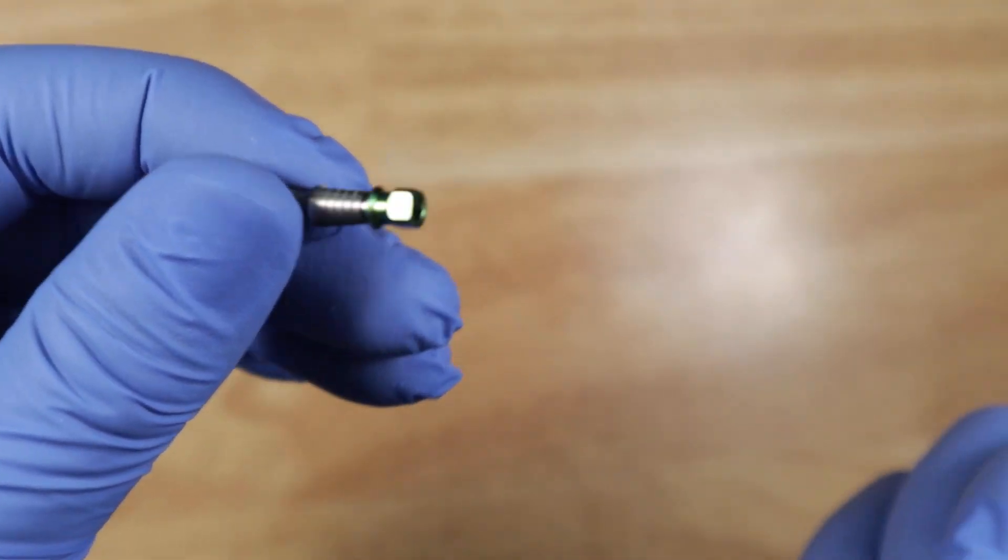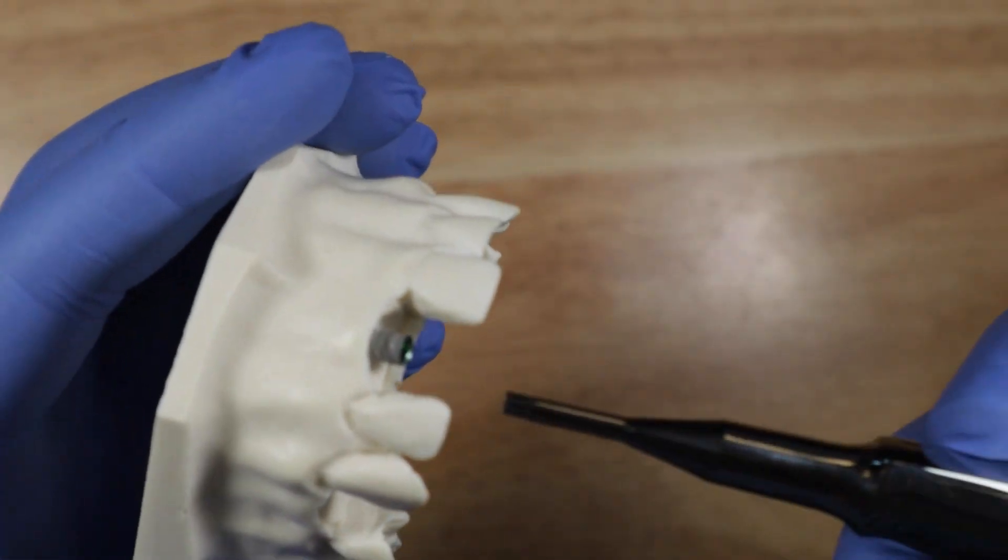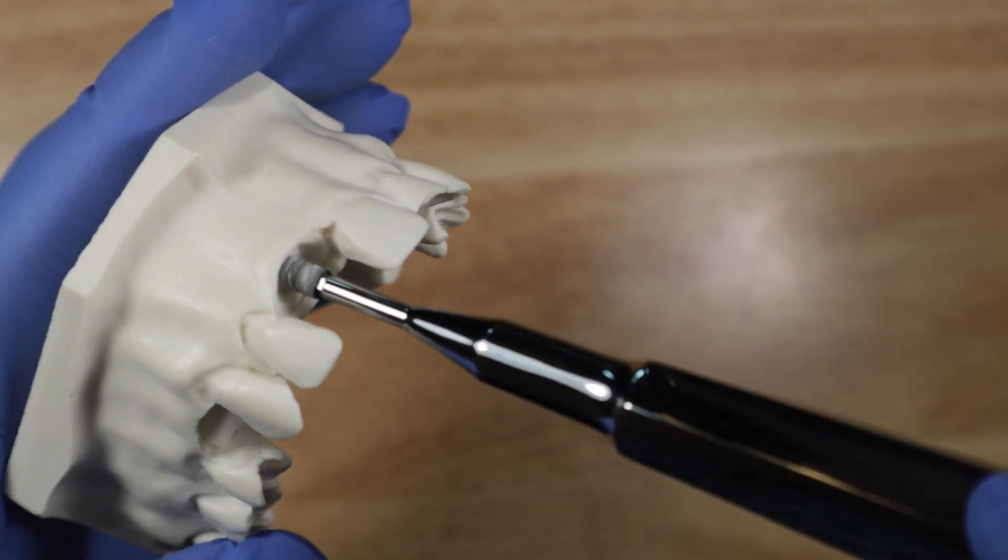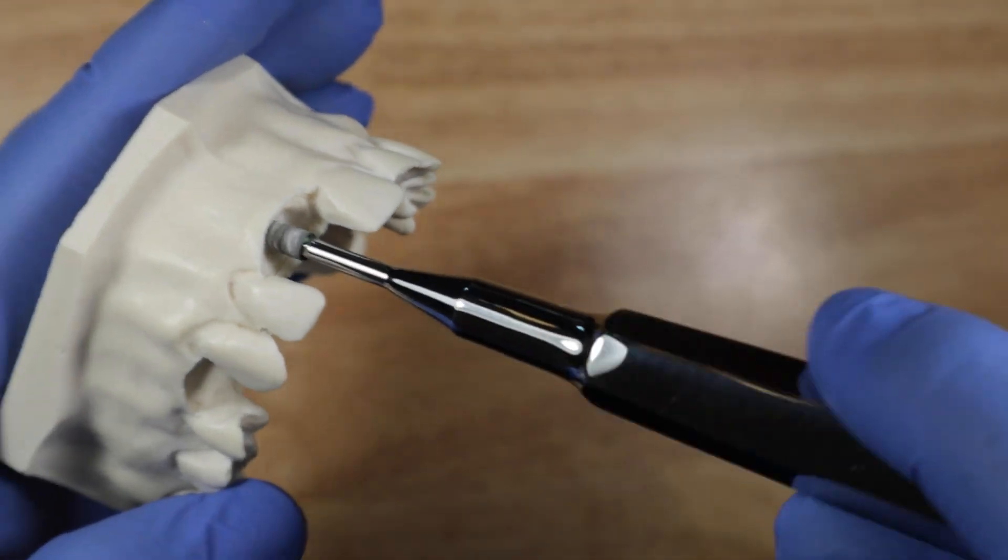Or it can be used to insert into the implant itself. Say this is your implant, it's already sort of in the site and so this actually fits into the platform. See, and you can control the depth of the implant.